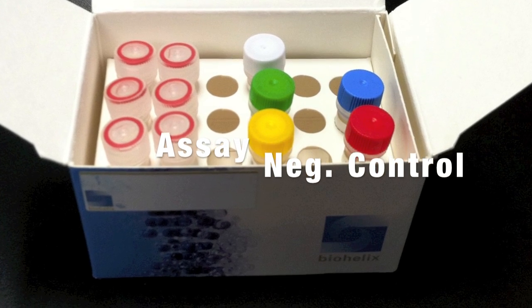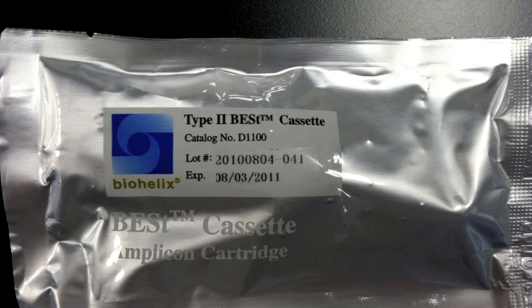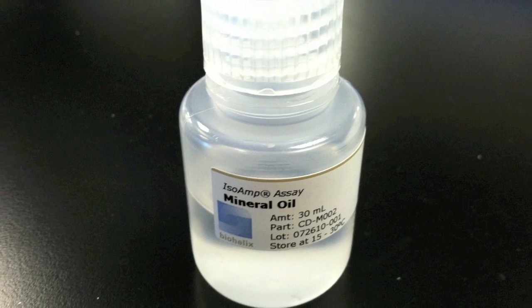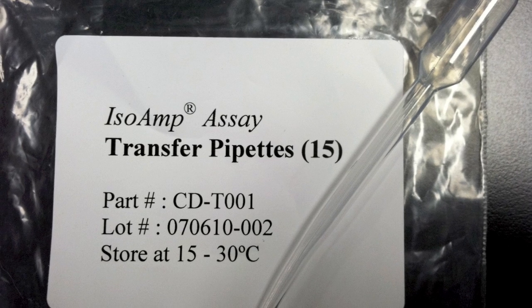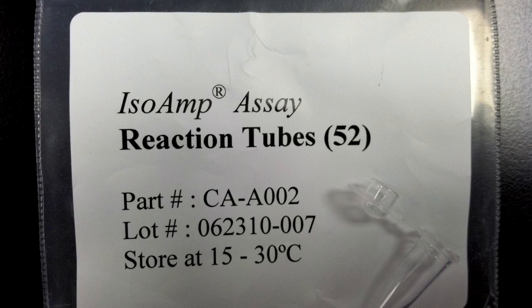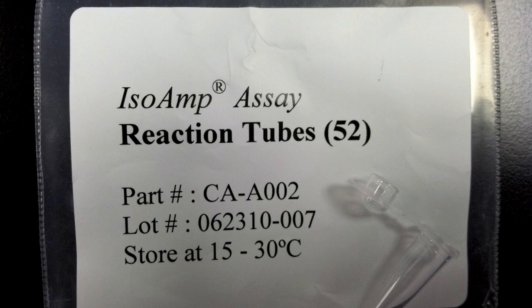The kit also comes with cassettes, mineral oil, disposable transfer pipettes, reaction tubes, and cassette disposal bags.